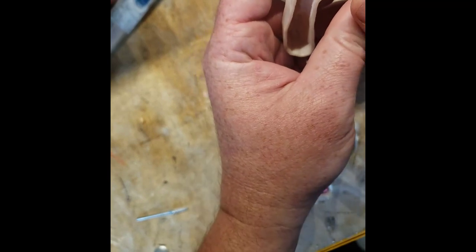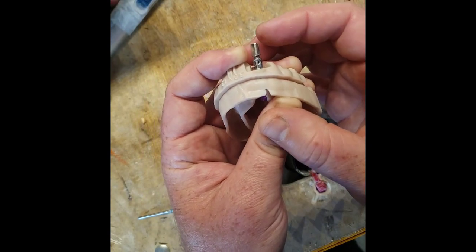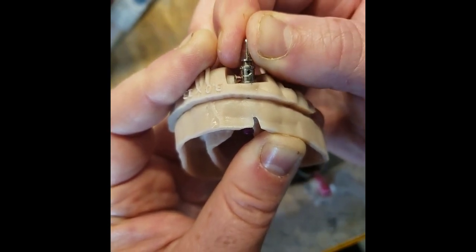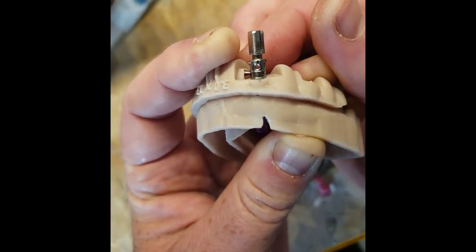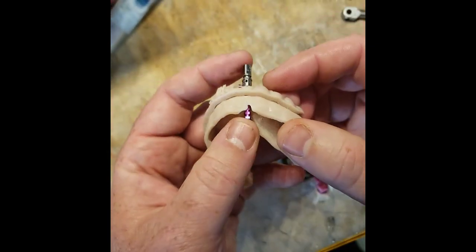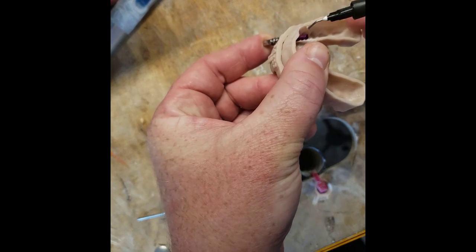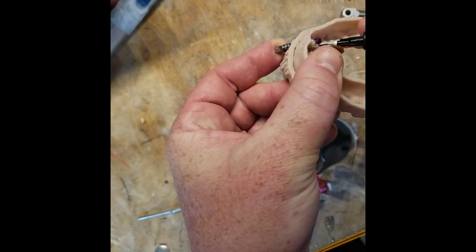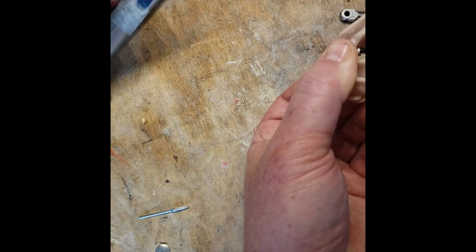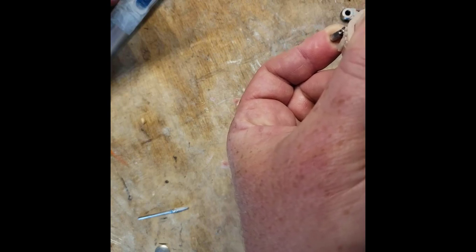When using the variable height driver, the stop becomes the little cover screw that's screwed into the side. Now that it's bottomed out, we need to turn it until a flat lines up. I've put pencil marks on the little period I created in the software, and that looks lined up to me — the analog is pushed down completely. Now I just need to lock it into that position using a little flowable composite, engaging the anti-rotational portions of the analog so there's no rotation. I'll get flowable composite up into all the nooks and crannies, then extend it over to the model and wrap that edge slightly.